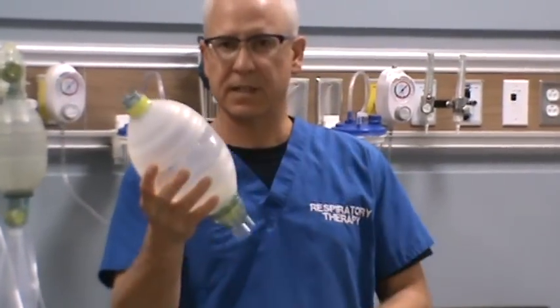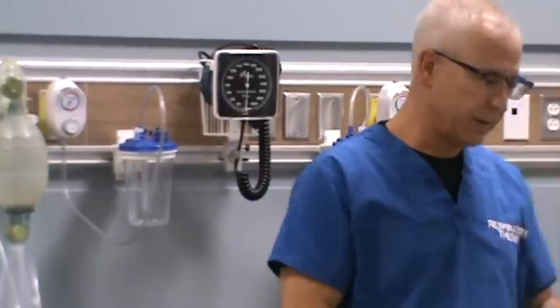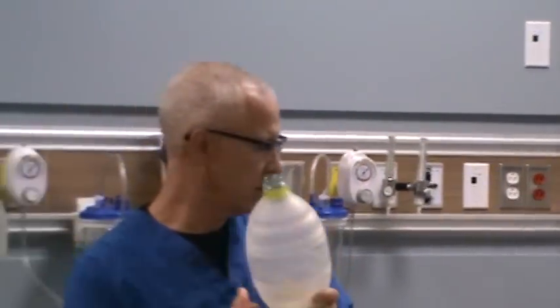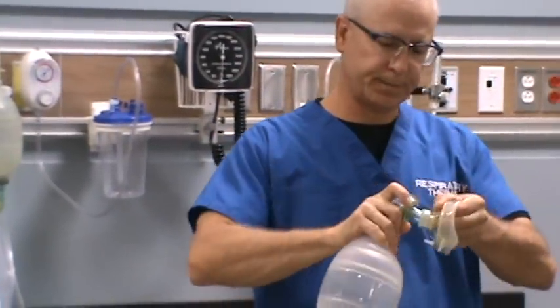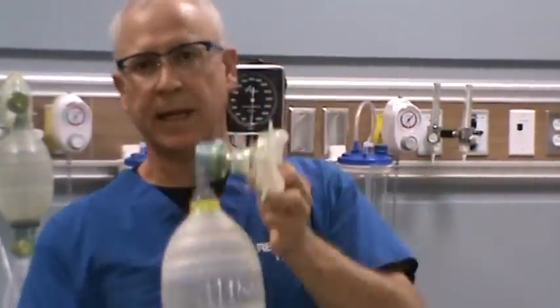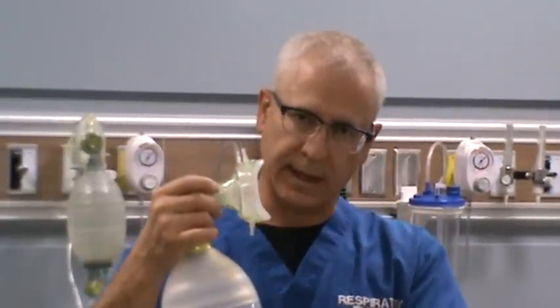In order to have this manual resuscitator work properly, you have to have all these components on. Grab the manual resuscitator, make sure you've got your optional reservoir attached, grab your patient valve assembly — it simply connects like so — and then grab your mask. Before you use it on a patient, it's a really good idea to pressure test your bagger. Some baggers allow you to do two pressure tests: one at the patient valve assembly and another at the gas inlet valve assembly.